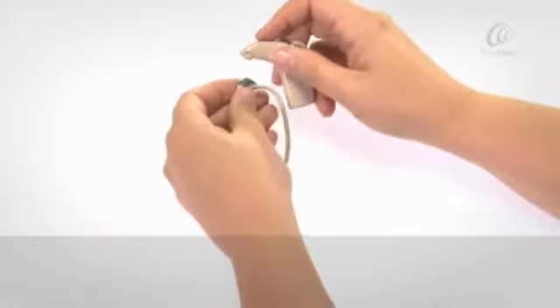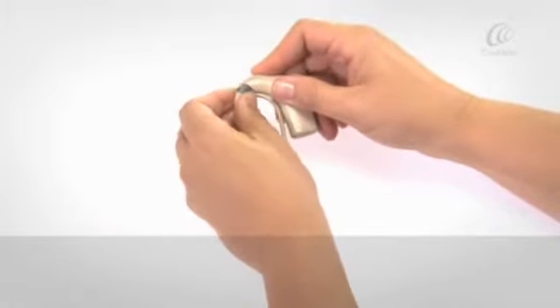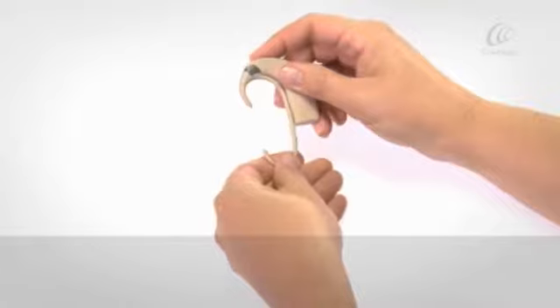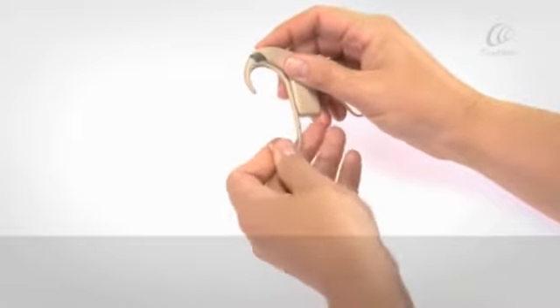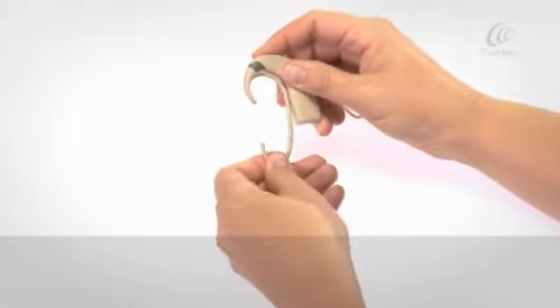Click your SnugFit into place. Carefully bend the lower part into shape to suit your ear.